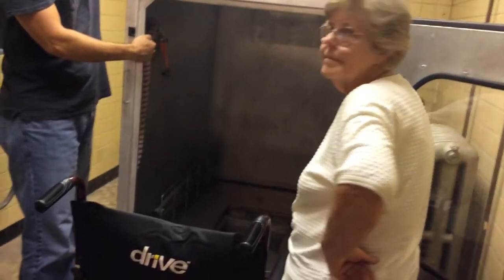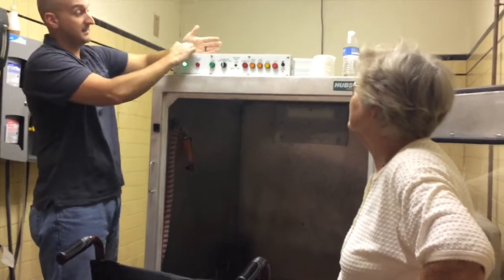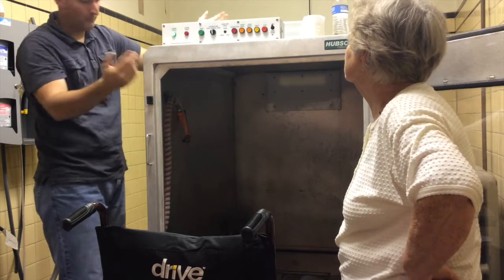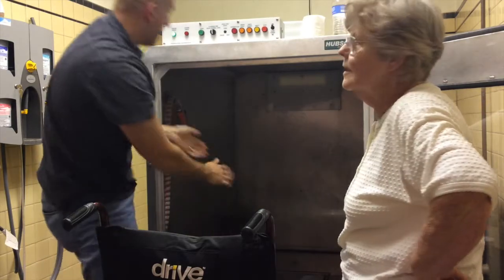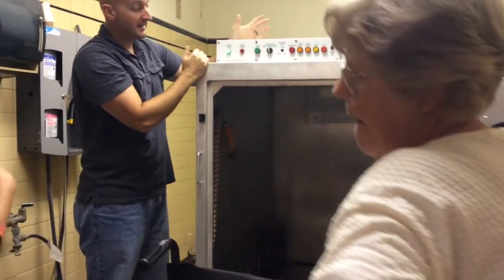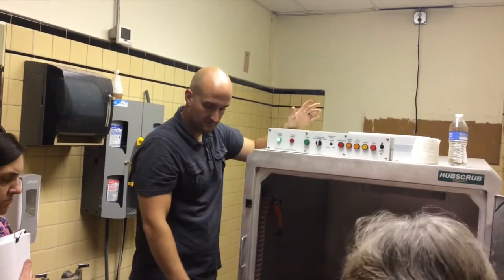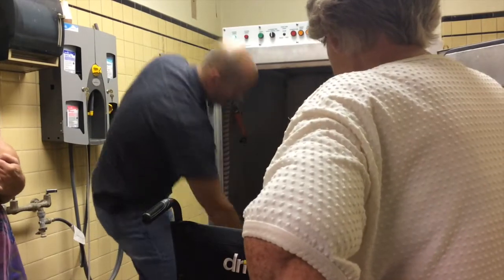One thing I noticed is ours has a little computer screen right here. Yours is just a system check light — green light means good. Ours will actually tell us what's going on; if something's wrong, a little code comes up and I can look at the code in the instruction manual — it might say drain malfunction or anything like that. Which is when I call Jason and he comes and fixes it. It's all going to work the same, really.